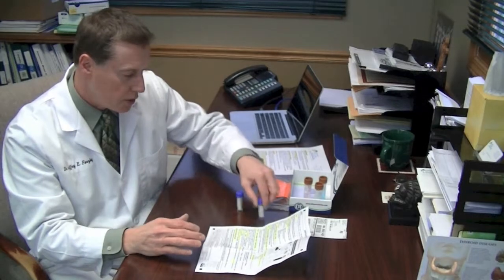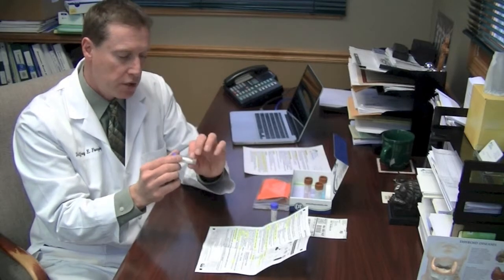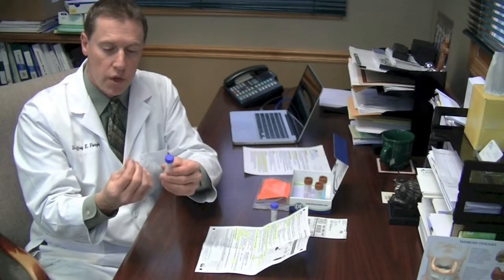We're going to start with the HC vial. The other blue top vial is labeled H. HC, and what you have in here is a cylindrical piece of cotton. Do not touch this with your hands. You might have lotion on there that can affect the test. Take the top off, pop this cotton into your mouth, let it soak under your tongue. Do not chew on it.